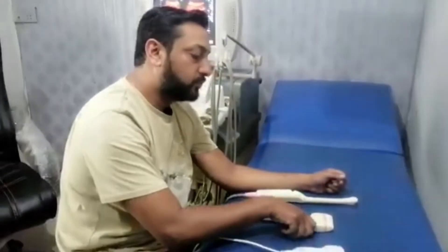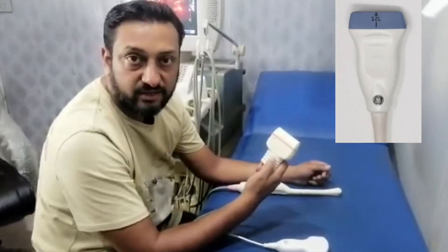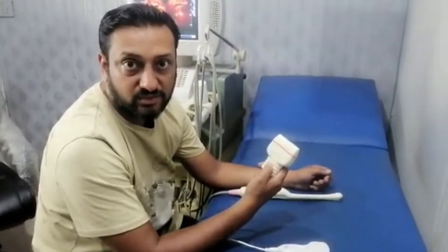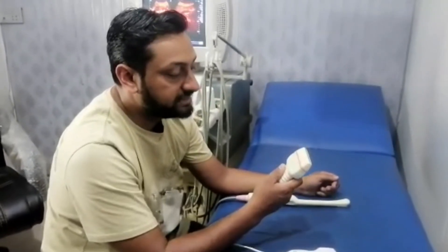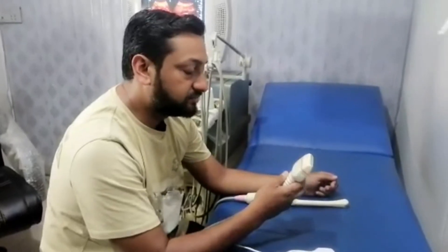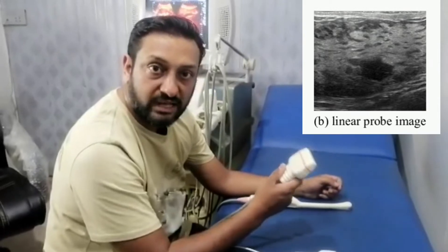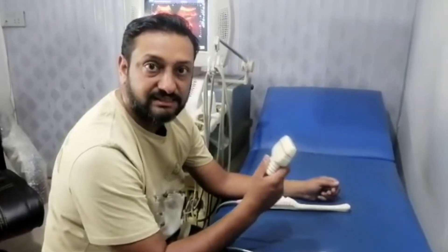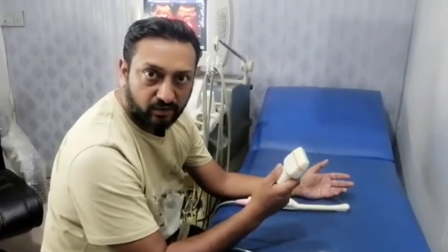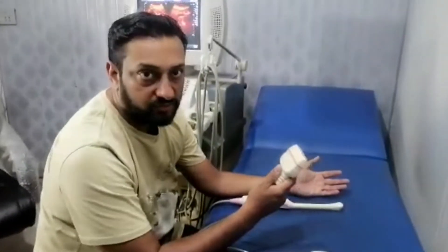Next comes the linear probe. This is a high frequency probe and it has very good resolution, but we have to compromise on depth. So we cannot see the deeper structures with this probe. Its frequency starts from 8 MHz. This probe is used for evaluation of superficial structures like superficial collections, vessels, neck vessels, thyroid, and any kind of swelling on the body.